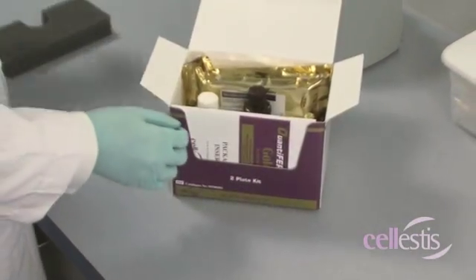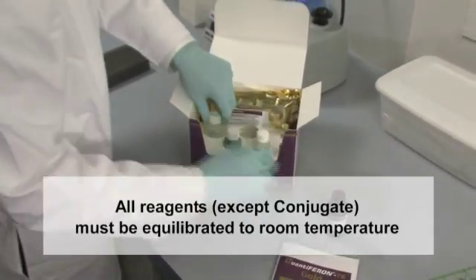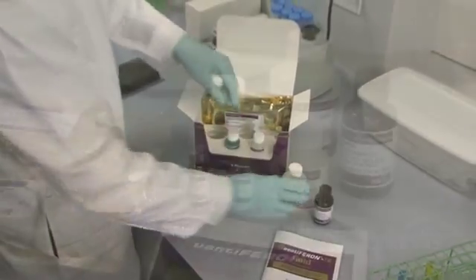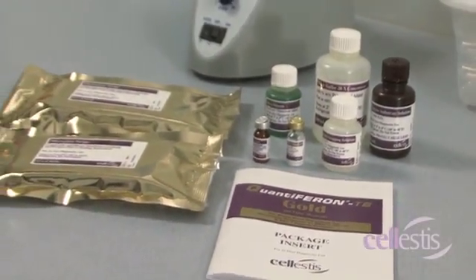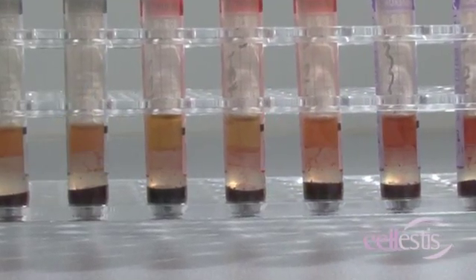Prior to commencing the ELISA, all reagents except the 100 times conjugate concentrate must be equilibrated to room temperature. This will take approximately one hour. Plasma samples should also be at room temperature.